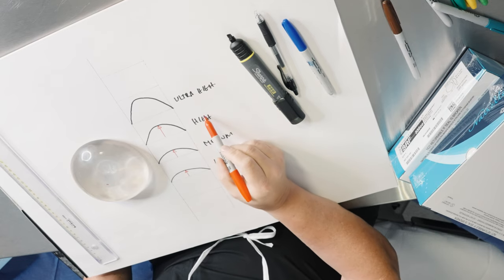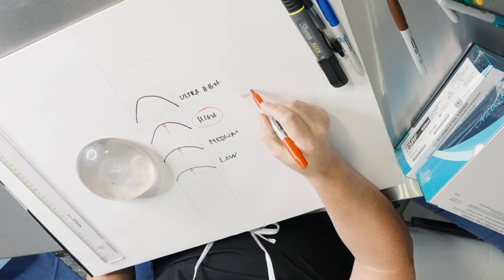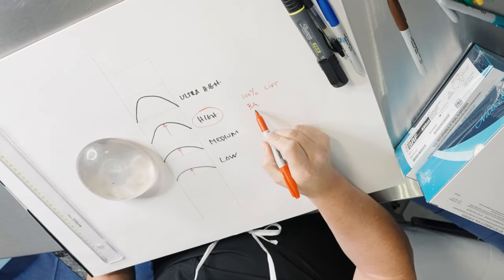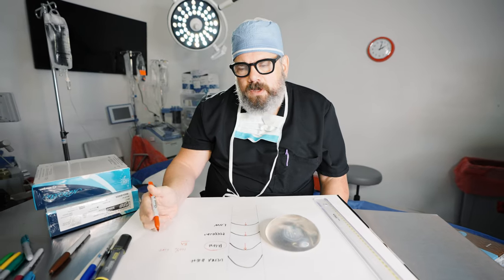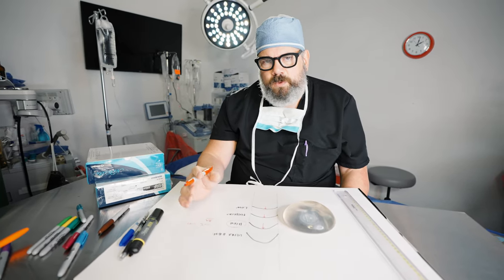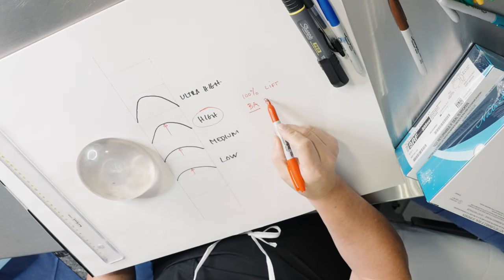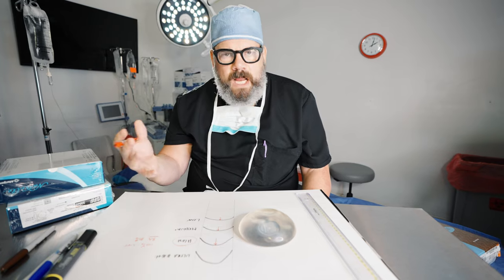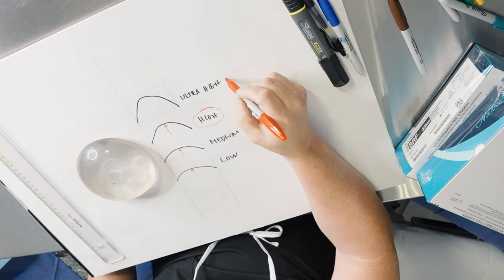I typically use the high profile implant — 100% of the time for a lift with an implant, I will always use a high profile implant. For a simple breast augmentation, I frequently use a high profile implant as well; that's the look I tend to prefer. I will also use some lower profile implants depending on what the patient desires. I use the high profile probably 80% of the time for breast augmentation, based on where I am and the patients I have.